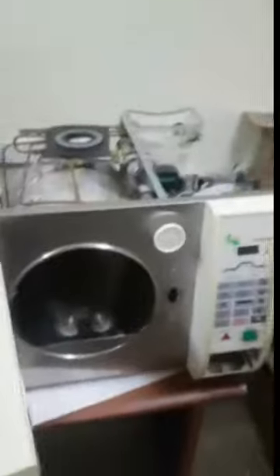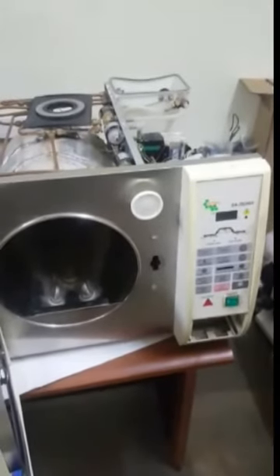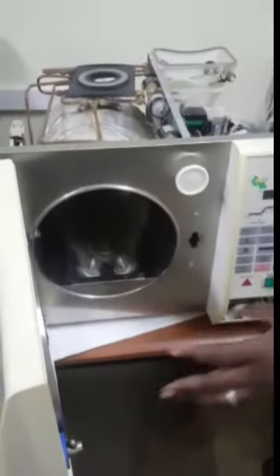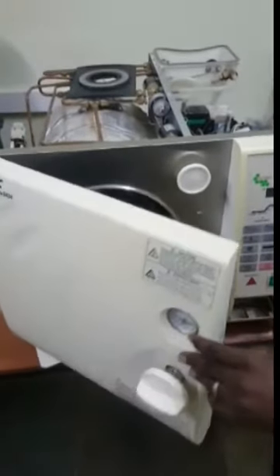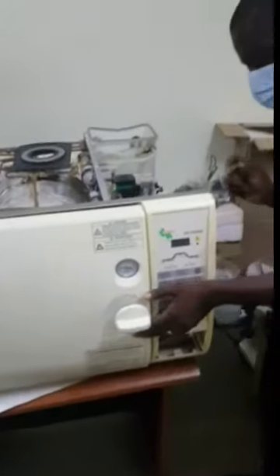We also want to show you some parts that, by experience, we will need to address, and some faults that occur regularly. One of them is, as with all autoclaves, leakage from the door. If the gasket is worn out, we have that issue most of the time. Or the door locking mechanism may not be in good shape.